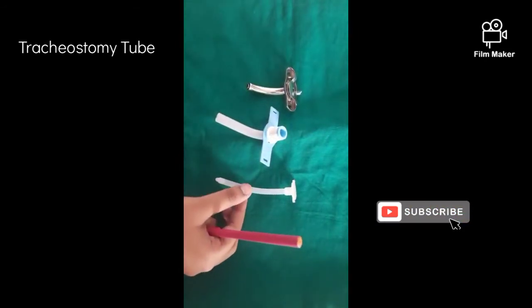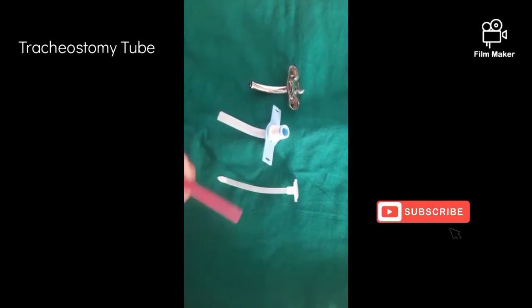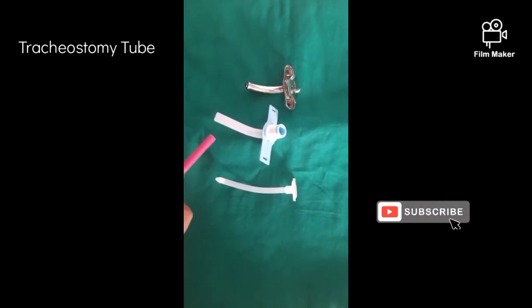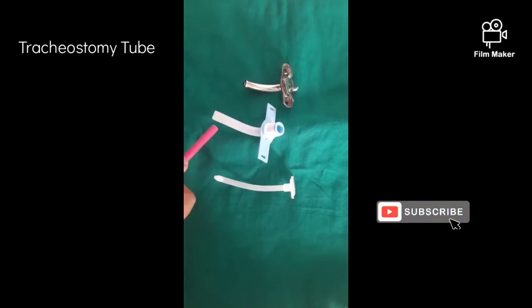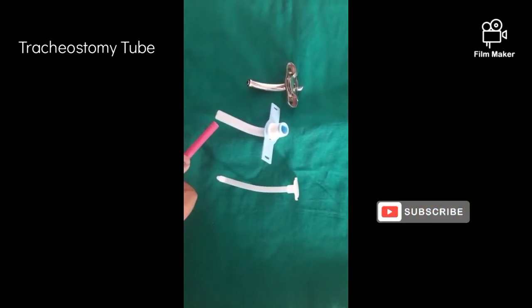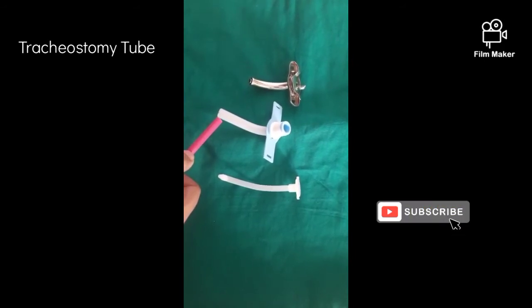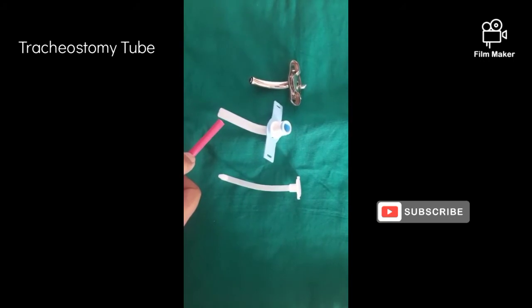Indications: Tracheostomy tube is used for obstruction at the mouth or throat, breathing difficulty caused by edema or injury, airway reconstruction following tracheal surgery, airway protection from secretions or food because of swallowing problems, and long-term need for ventilator support.